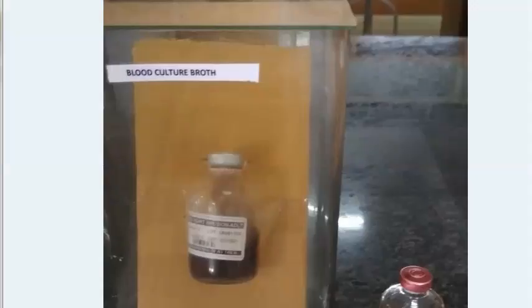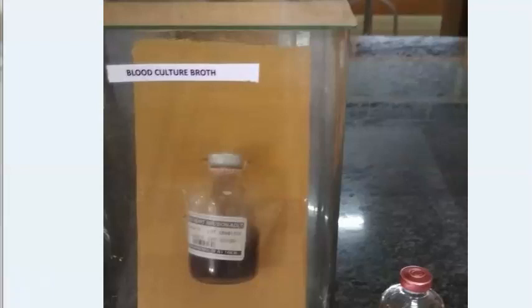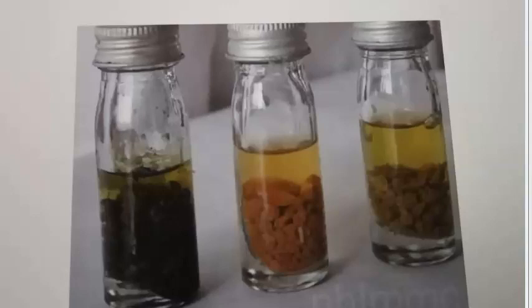Blood culture broth contains brain heart infusion broth and is used for Salmonella typhi via Castaneda's media. Robertson cooked meat medium is an anaerobic media — cooked meat is added to nutrient broth. The cooked meat contains reducing substances like glutathione which maintain the anaerobic environment. It is used for Clostridium species.